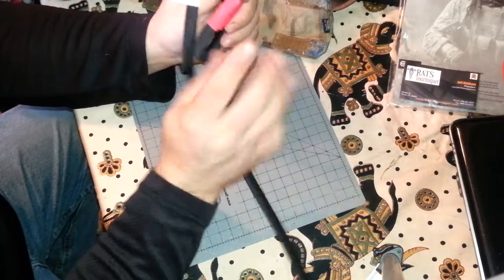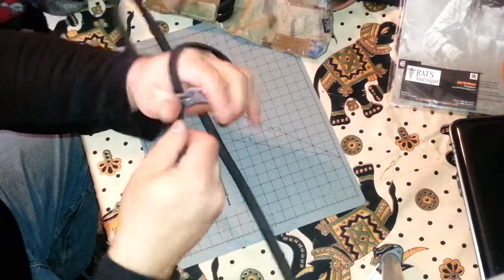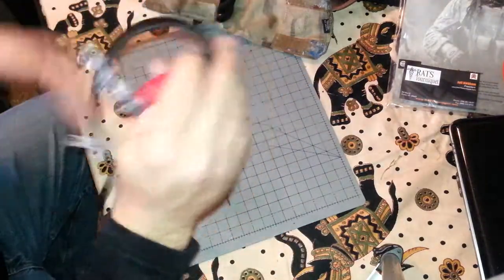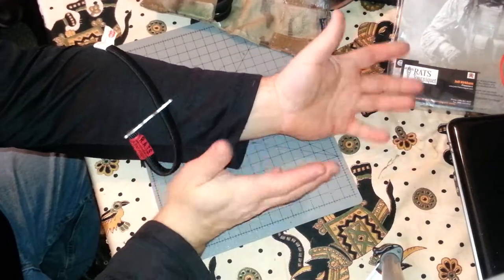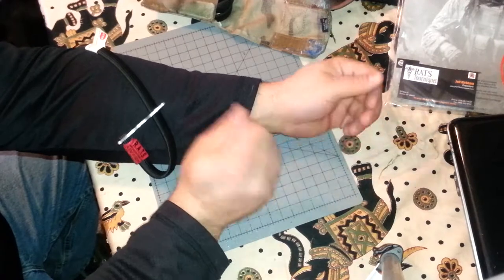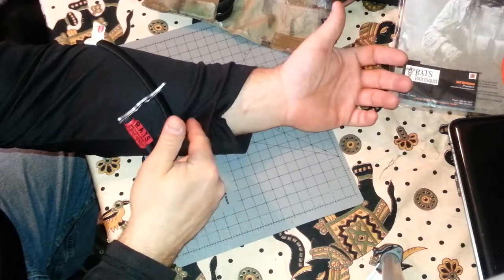You can pre-start the loop, but that's not the best way — you could cause more damage passing it under the limb. Let's say you have a bad laceration. On James Yeager's video, there was a comment from a guy who was moving, opened a box with a knife, cut his forearm, hit an artery, and was squirting blood. He grabbed his RATS tourniquet, applied it immediately, and stopped the blood flow almost instantly.